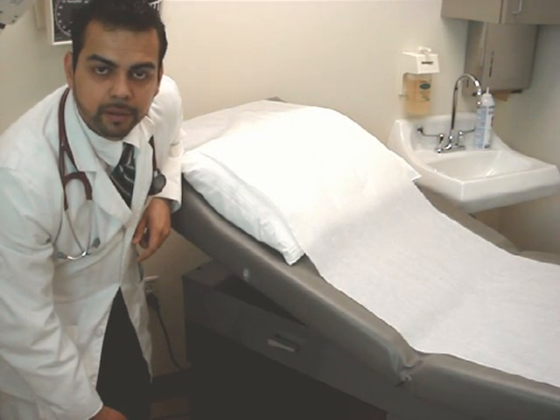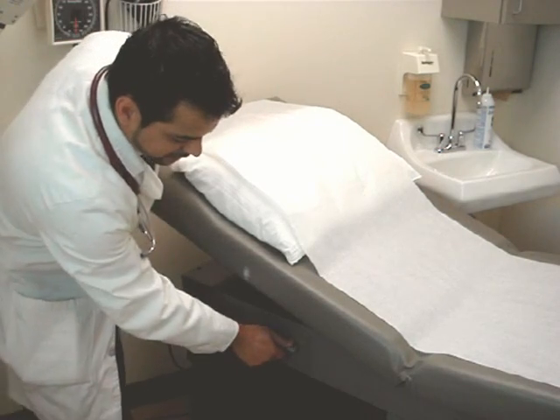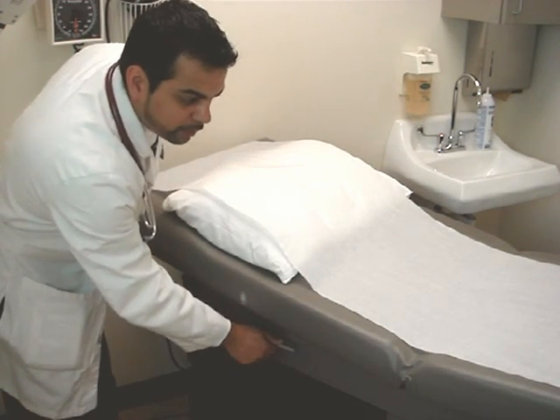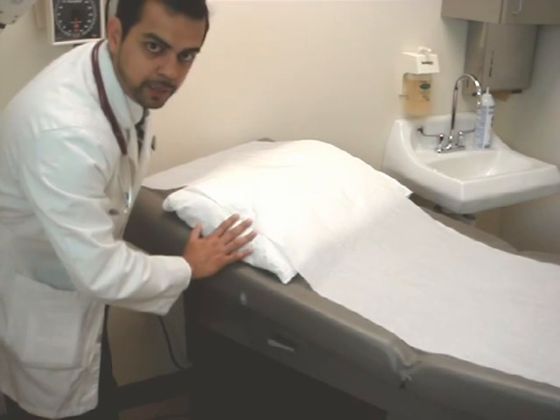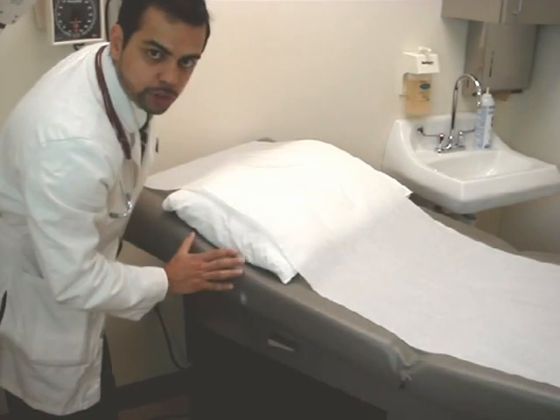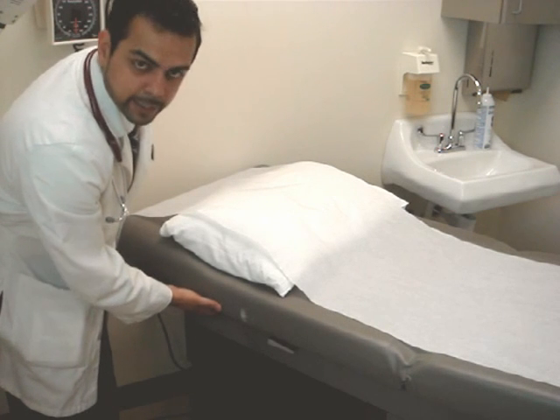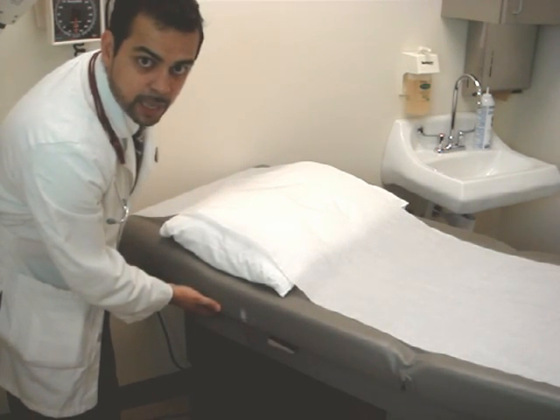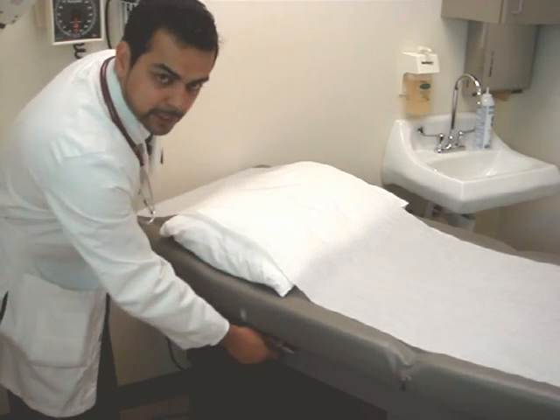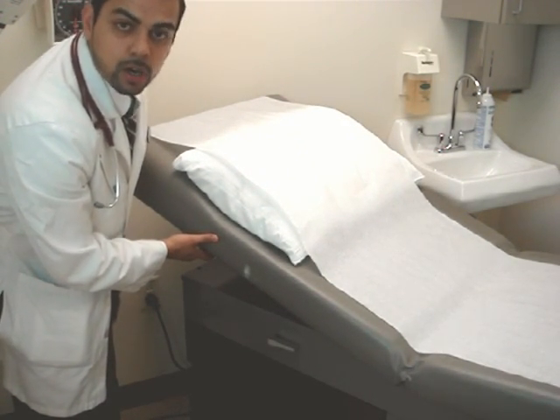As far as raising and lowering the head of the bed, on manual control beds there is typically a lever on the side that controls this function. Depressing the lever down allows you to push down on the head of the bed to lower it. With the patient lying supine, make sure that before you depress the lever, you have them sit up off the bed — with their added weight, you don't want the bed to come crashing down. Also, make sure you don't put your hand as a support for their added weight, as it may cause injury to both the patient and yourself. To raise the head, simply lift up on the head of the bed. On electronic beds, there are foot pedals or push buttons to raise and lower the head.